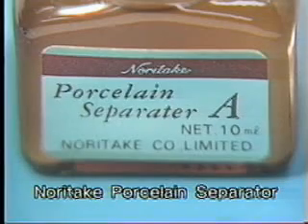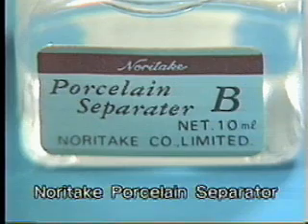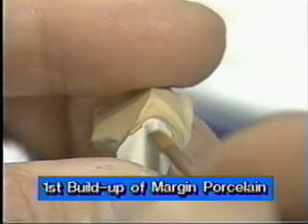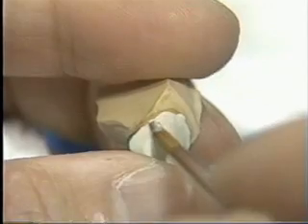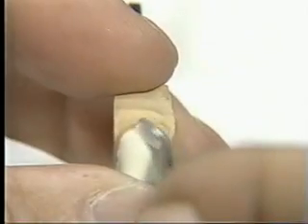Before the buildup of margin porcelain, coat the shoulder of the die first with margin separator A, and 1 to 2 minutes later with separator B. Before the drying of separator B, build up margin porcelain and condense it with the appropriate instrument. Remove the excessive margin porcelain with a spoon-like instrument.